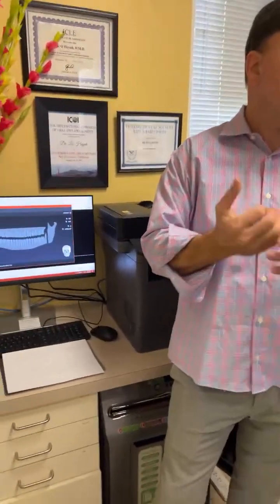Another thing we need to learn. You import that STL file, and all the tooth numbers get numbered automatically with AI, because we have algorithms that detect certain landmarks, and it knows the tooth numbers. It also does that on the DICOM for the CT. Now when you click on any tooth number, any images associated with that tooth number get pulled in.